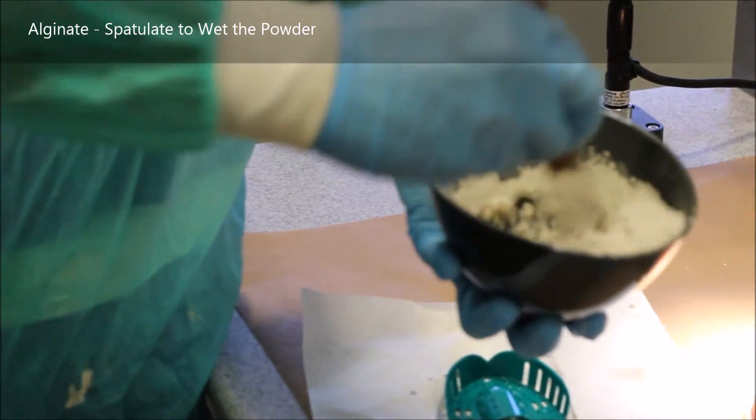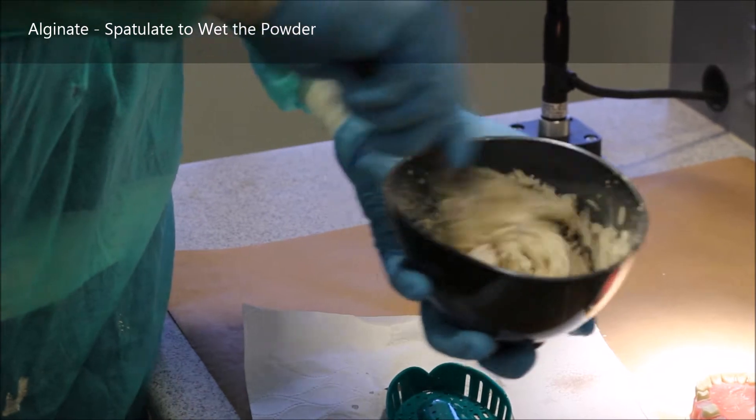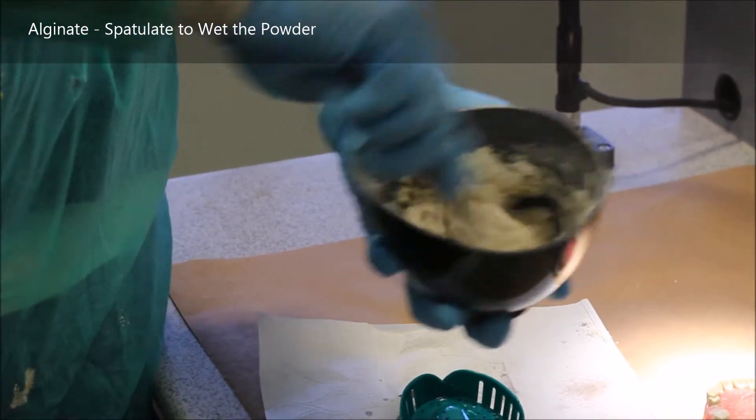You start by mixing slowly with your spatula and you're just trying to get the powder wet. You're not trying to be very forceful.